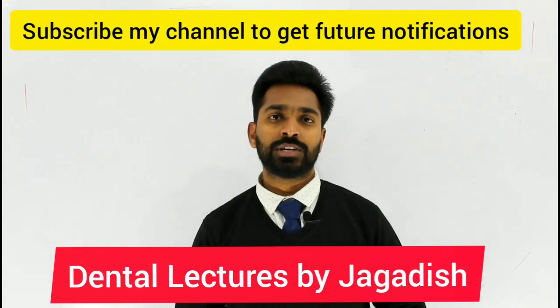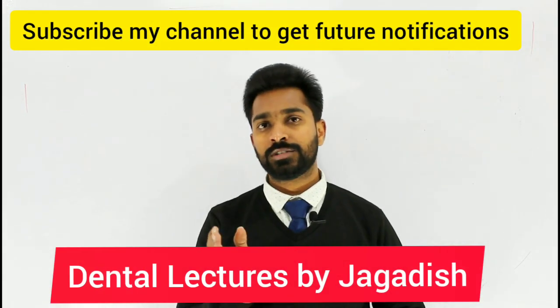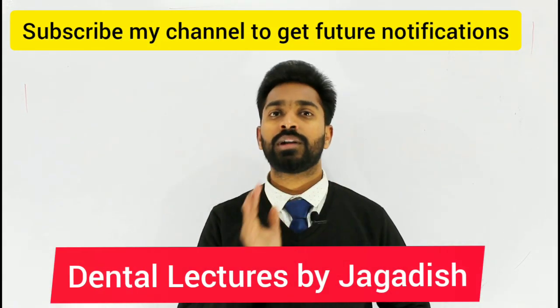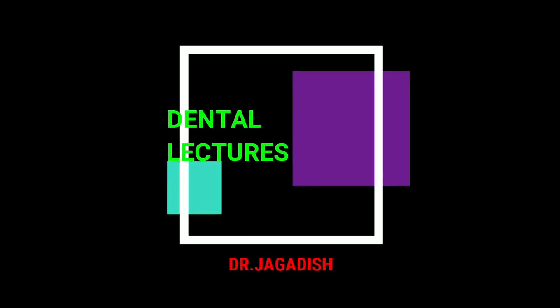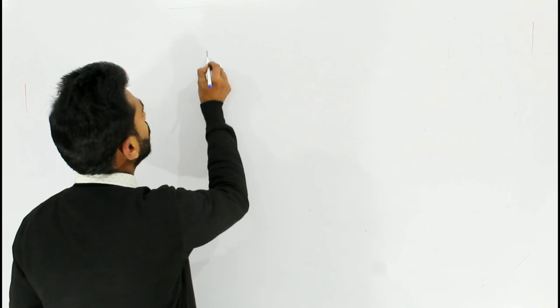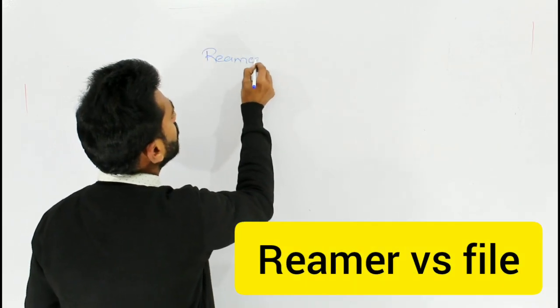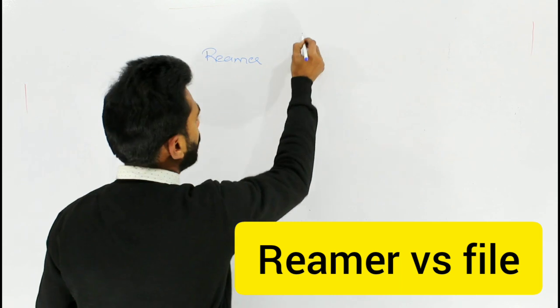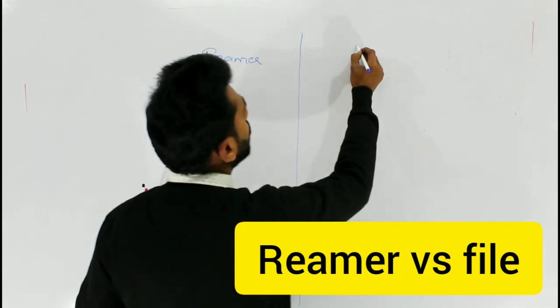In this session we are going to study about the differences between a reamer and a file.